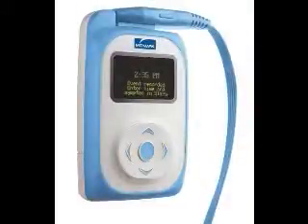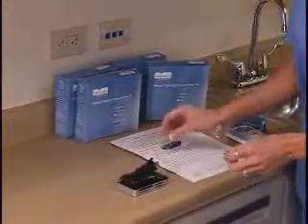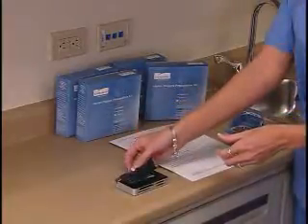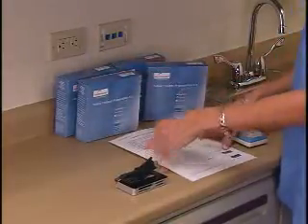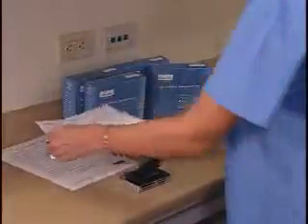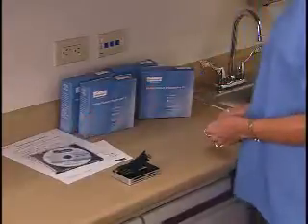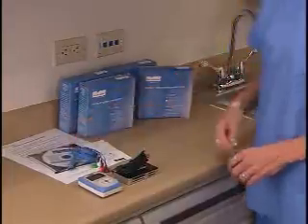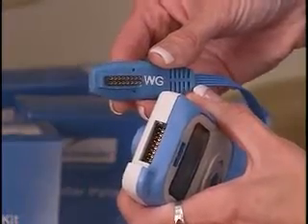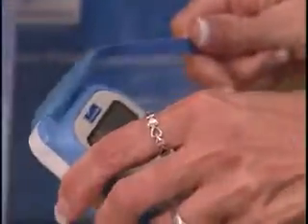To begin, we will review the package contents and setup of the IQholter. The IQholter system comes with a compact flashcard reader with cable, a USB version software security key, 4 prep kits, a quick reference guide, operation manual CD, Holter recorder, and patient cable. You can now attach the patient cable to the recorder. Care should be taken when lining the pins of the recorder up with the patient cable.